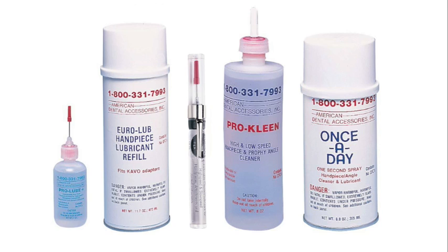American Dental Accessories recommends cleaning and lubricating the handpiece before each autoclave cycle, and we offer several lubricants and cleaners specifically approved for this operation.